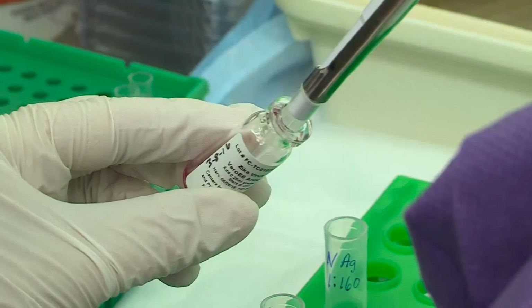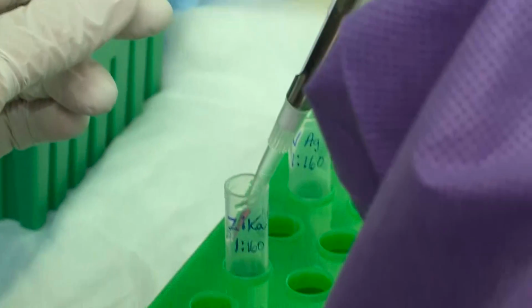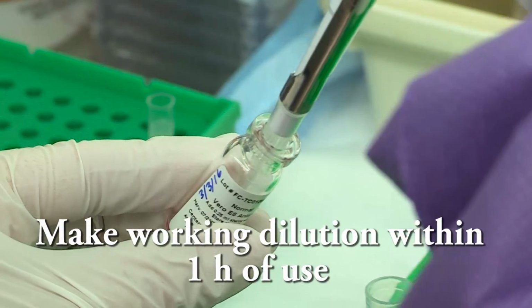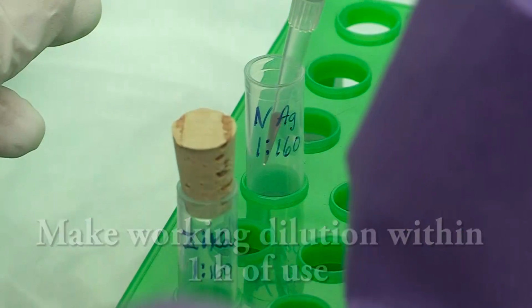The antigens can be used to detect IgM caused by all known Zika virus strains. The Zika virus antigen here is used at a 1 to 160 dilution in wash buffer, and normal antigen is always diluted the same as the viral antigen.